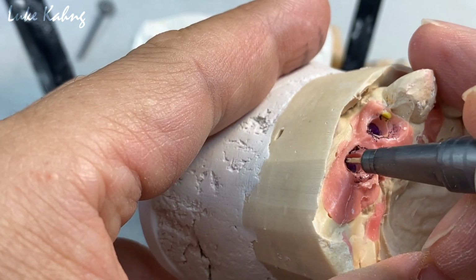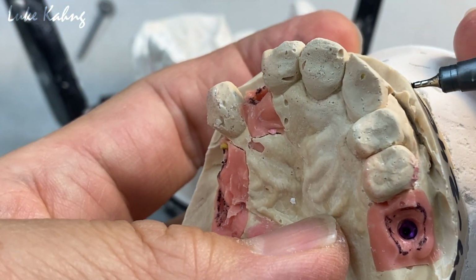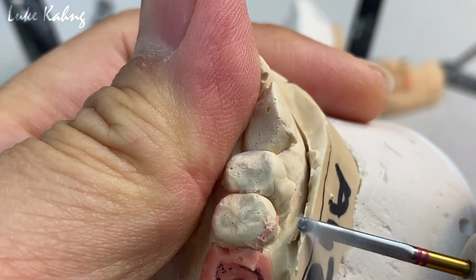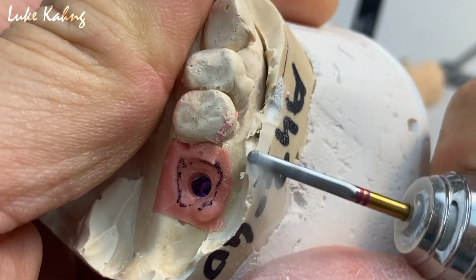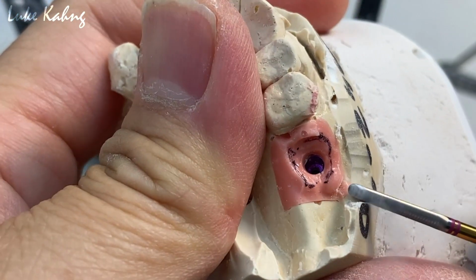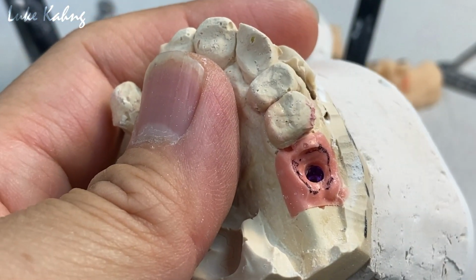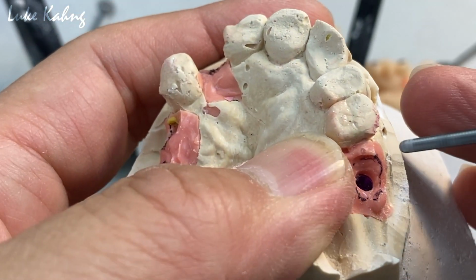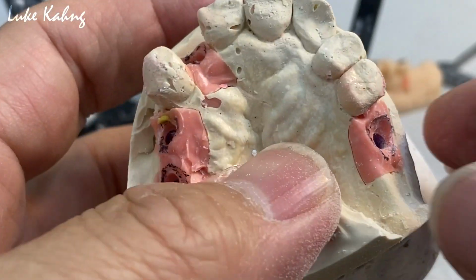So that is the key to make this nice temporary. Number 1, I have to get rid of all those things. Just like that. Okay. Get rid of this. Okay, number 2. Take it out. Before I do this, just grinding down much like this, right? Take it out.